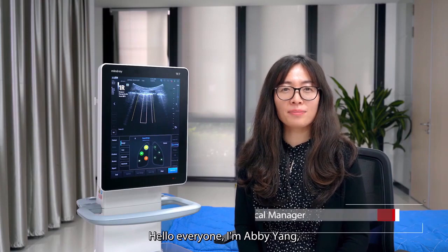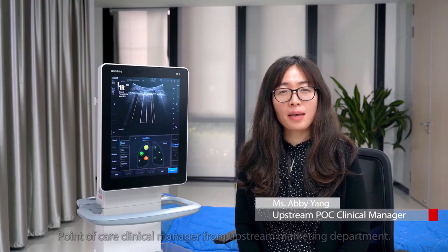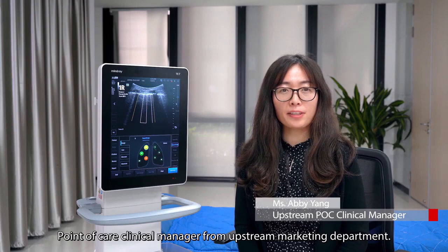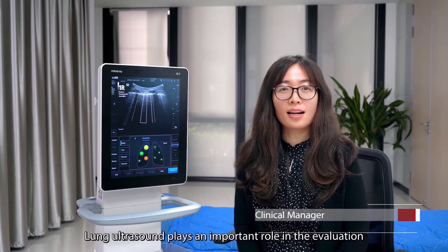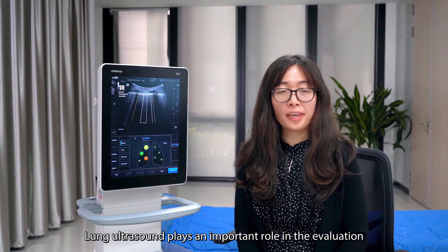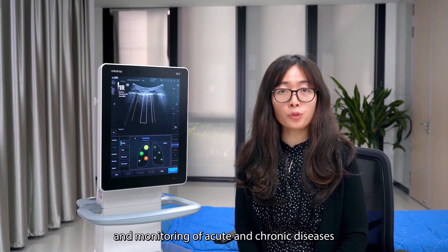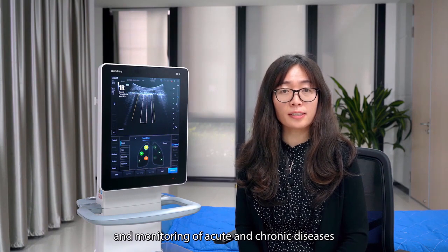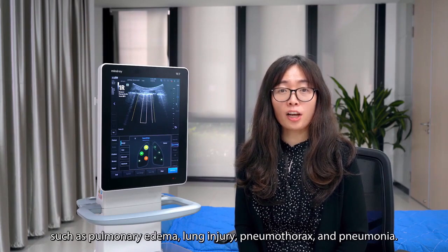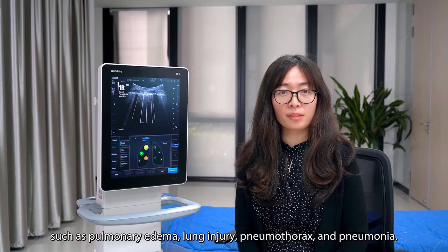Hello everyone, I'm Abby Yang, Point of Care Clinical Manager from the Upstream Marketing Department. Lung ultrasound plays an important role in the evaluation and monitoring of acute and chronic diseases such as pulmonary edema, lung injury, pneumothorax, and pneumonia.